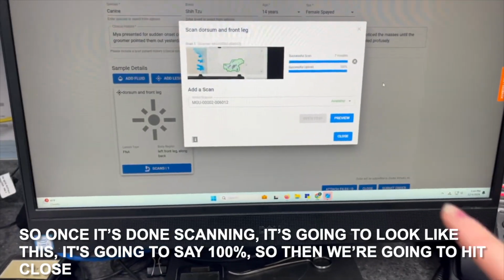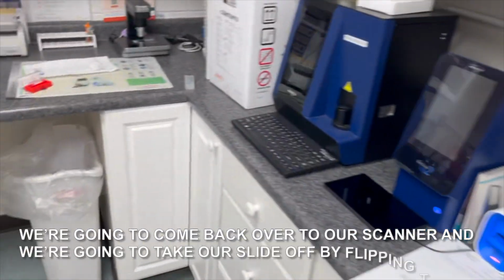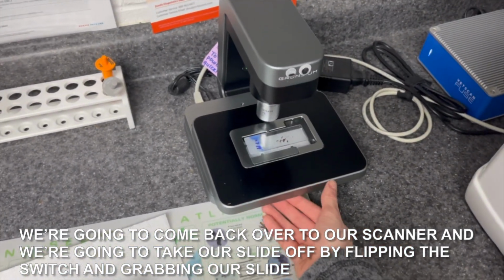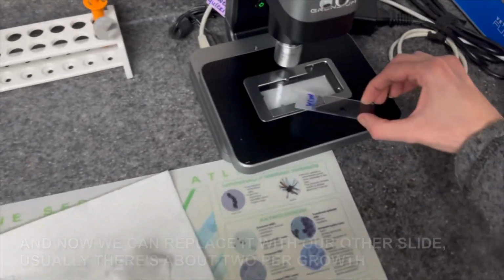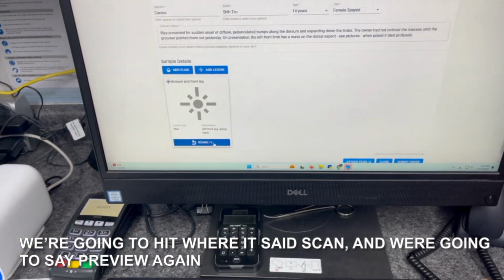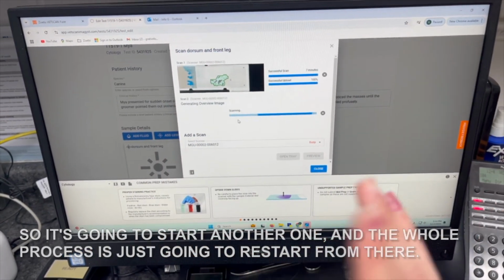Okay, so once it's done scanning, it's gonna look like this. It's gonna say 100%, so then we're gonna hit close. We're gonna come back over to our scanner, and we're gonna take our slide off by flipping the switch and grabbing our slide. And now we can replace it with our other slide. Usually there's about 2 per growth, and then we're gonna lock that in place. And then we're gonna come back over here. We're gonna hit where it says scan, and we're gonna say preview again. So it's going to start another one, and the whole process is just going to restart from there.